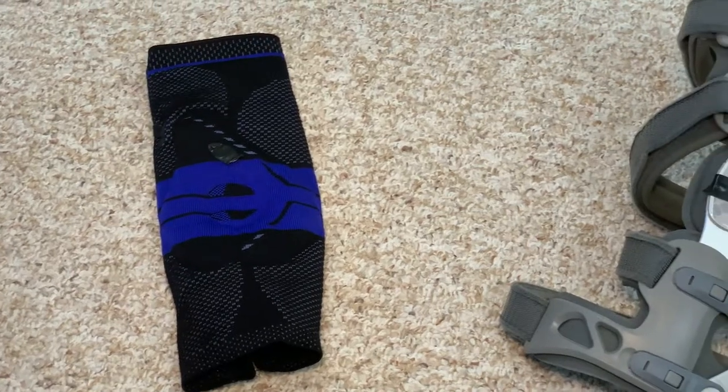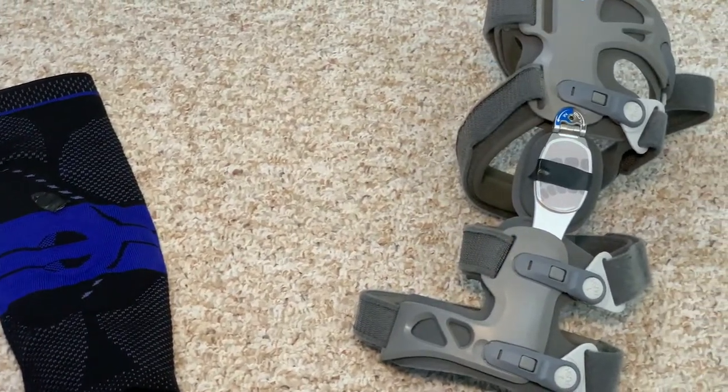When it comes to these two knee brace designs, most likely the most expensive ones are going to be the most rigid and bulkiest. That's why a lot of people lean towards the sleeve design — it's a cheaper alternative and at least something. Some brace is better than no brace, right? Well, that really depends on the outcomes of what's going on with your knee. If you wear the wrong brace, you could potentially cause more pain or make your condition worse, and if your condition gets worse, you've just wasted your money.